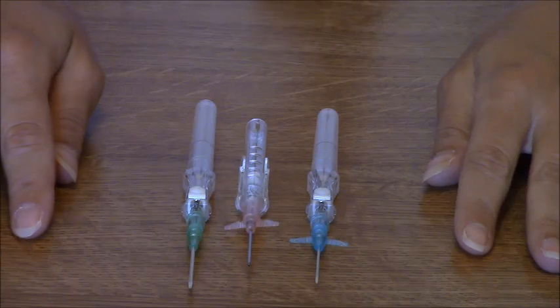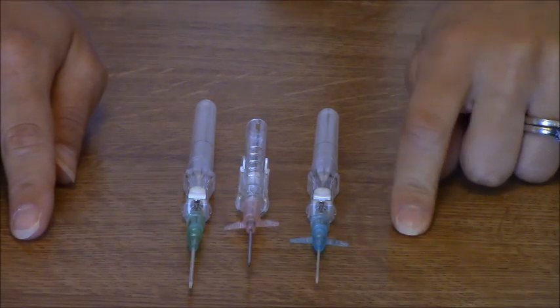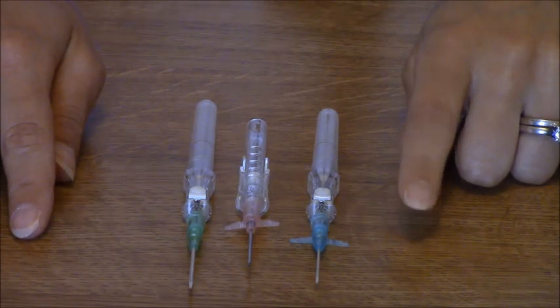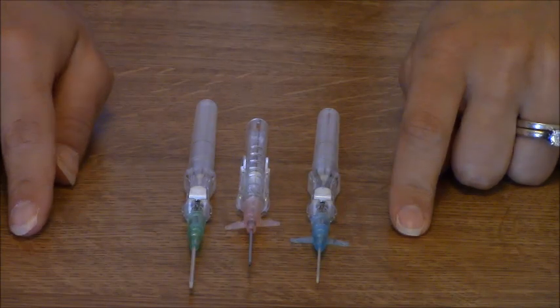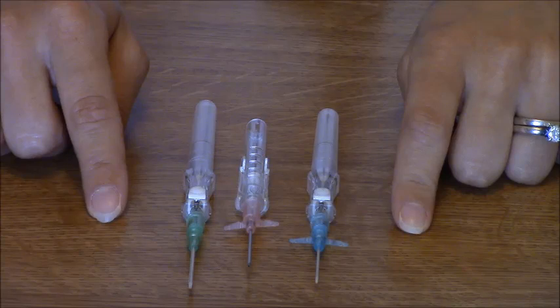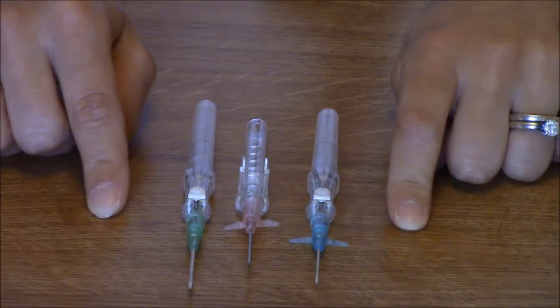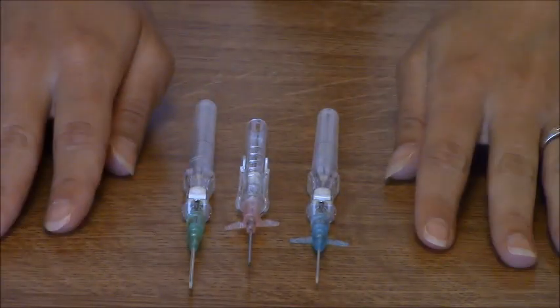You may also see a yellow color, which is a pediatric needle. Sometimes we like to use that on patients who have limited IV access or very small veins and we just need to give an IV drug. Or you can see a gray, which is the 16 gauge — that's typically used in surgery or the ICU and it's a very large cannula. But typically you're going to be using the main three colors.